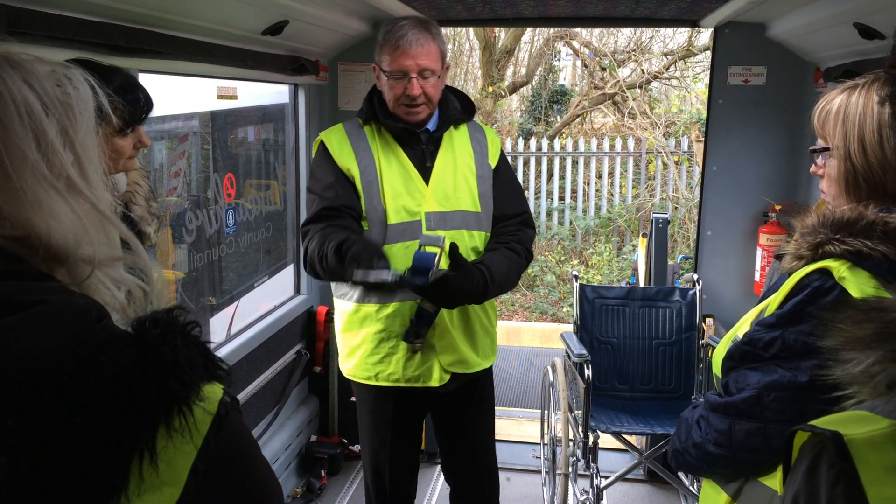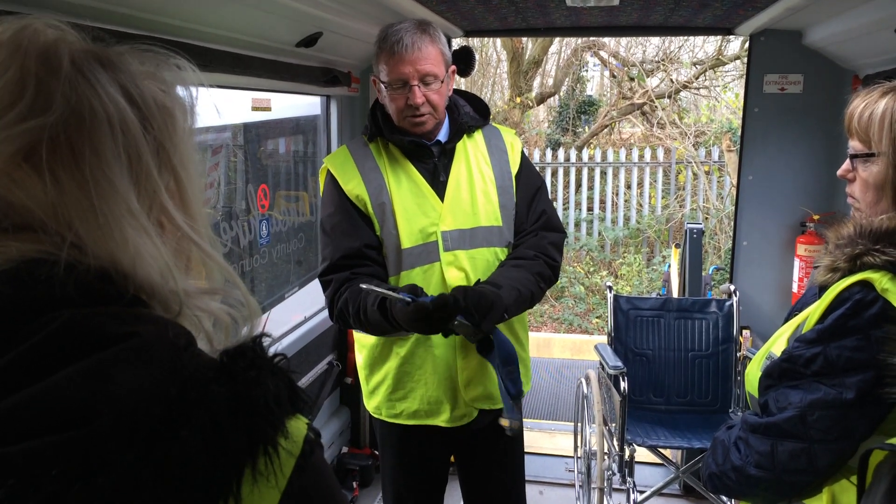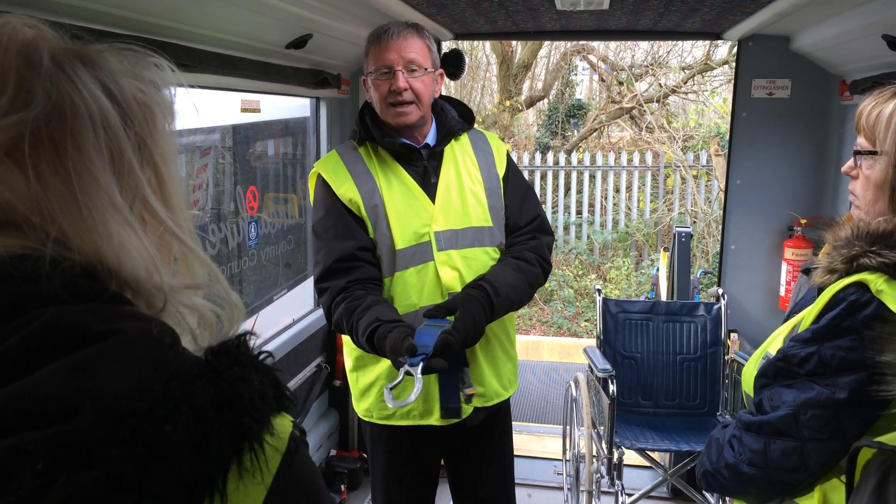When you're actually clamping on the wheelchair, you're better off with it that way, then you can see exactly what you're doing. Some people put them the other way, and then they can't see what they're doing.